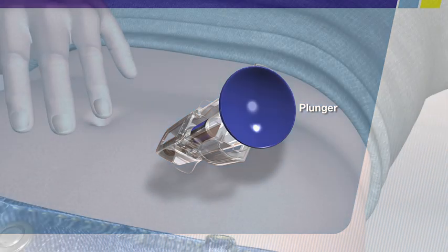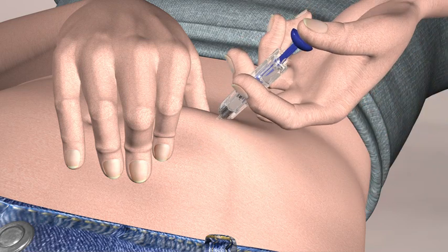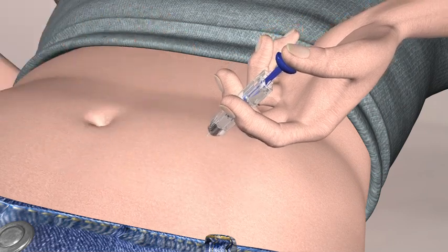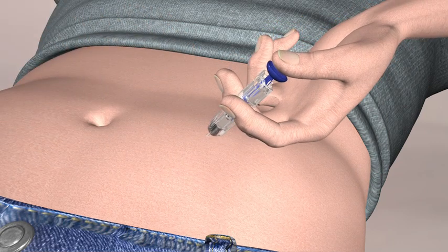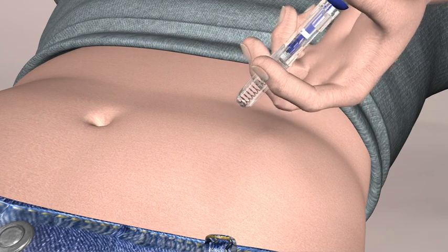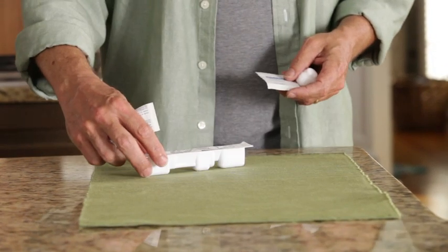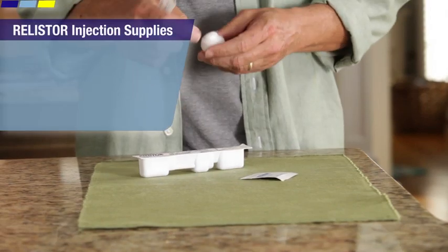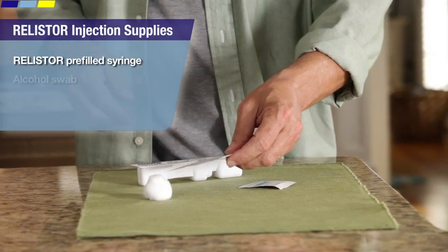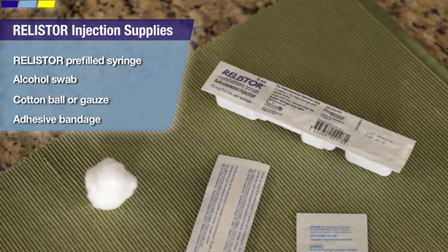The injection of Relistor is called a subcutaneous injection. And this just means that it is given with a short, small needle just below your skin into the subcutaneous layer. And this isn't a deep injection, and this type of shot usually doesn't hurt as much as the deeper ones. Before injecting, you should find a quiet place to do your injection. Choose a place with a flat, clean, and well-lit working surface. You'll need to gather a few supplies, including the Relistor pre-filled syringe, an alcohol swab, a cotton ball or some gauze, and a small bandage.